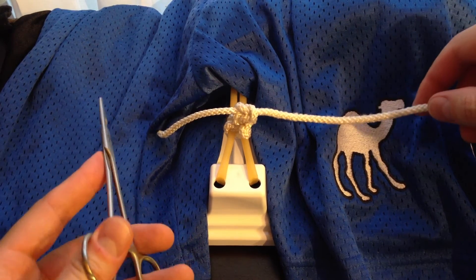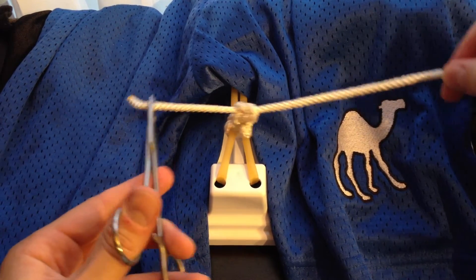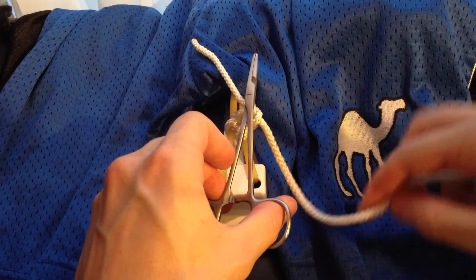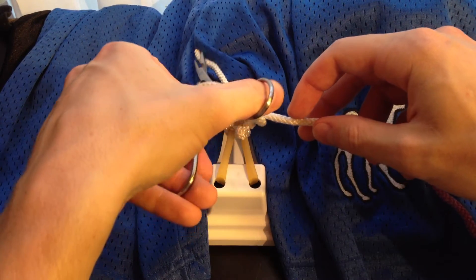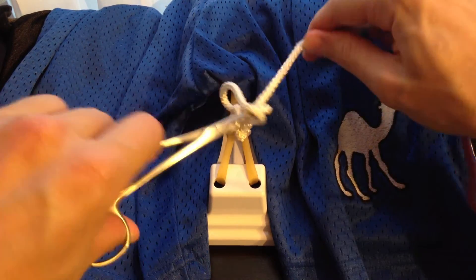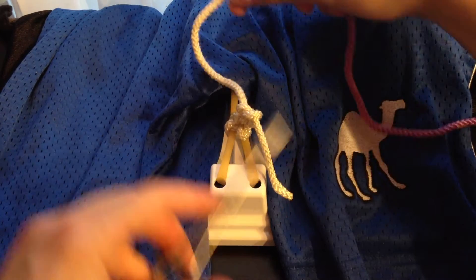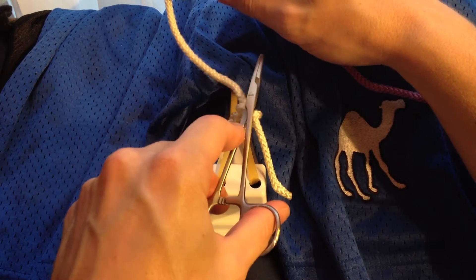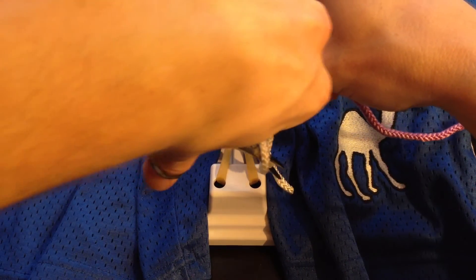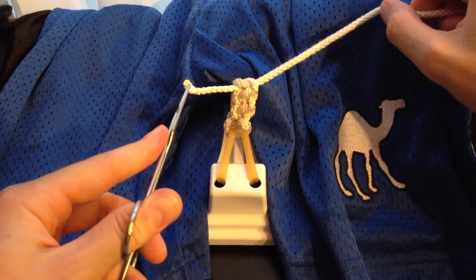If you've seen my other videos, you know how much I hate crossing my hands. So with the instrument tie, to avoid doing this, instead of having your strings come out to the left and right, you can torque it. When we put our instrument parallel to the incision, we can still loop this around. We're still going to grab the free end and pull it to the opposite direction. This time we grabbed it in the top left, so when we tighten it, we're going to pull it to the bottom right. So instead of crossing your hands, we're almost going up and down. Same thing for the last knot — lay it parallel, loop it once, grab the free end as close as you can to the tip, pull it through, back to the top left. And we've still got square knots.